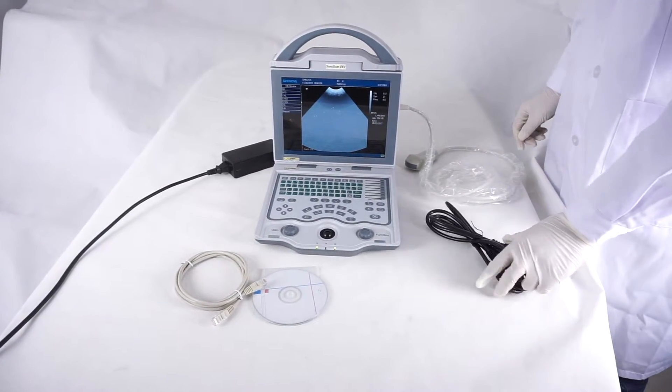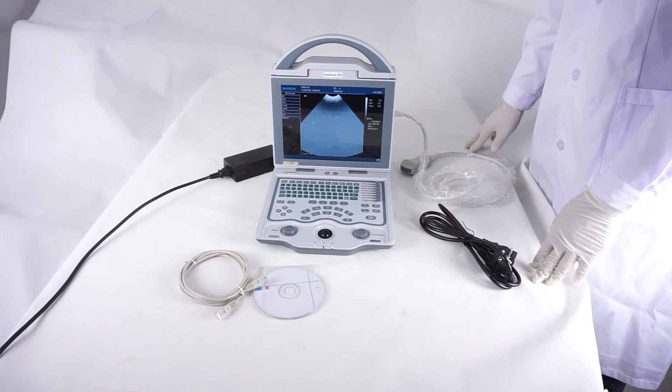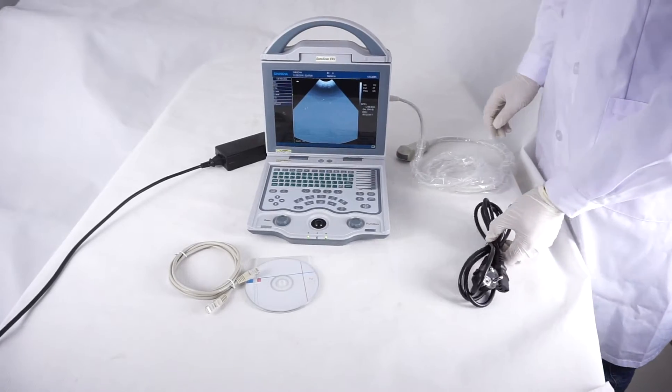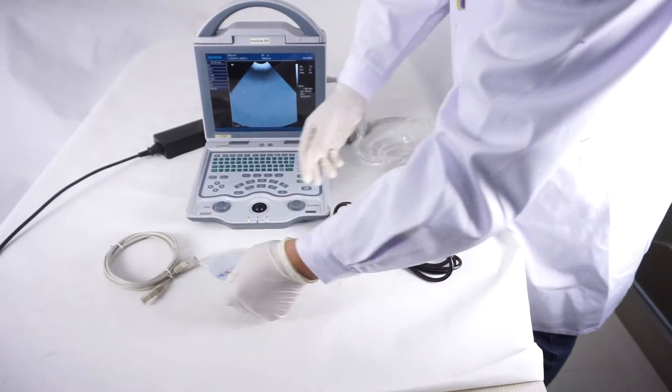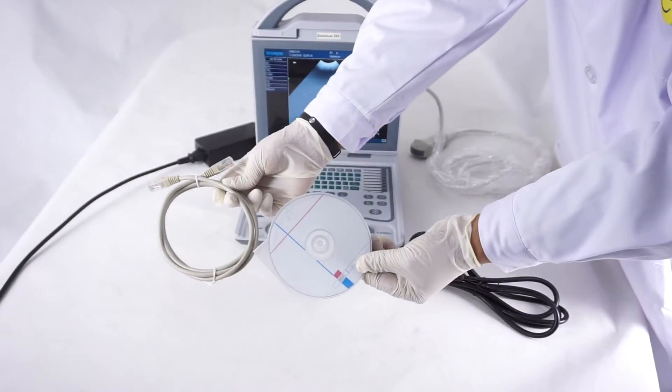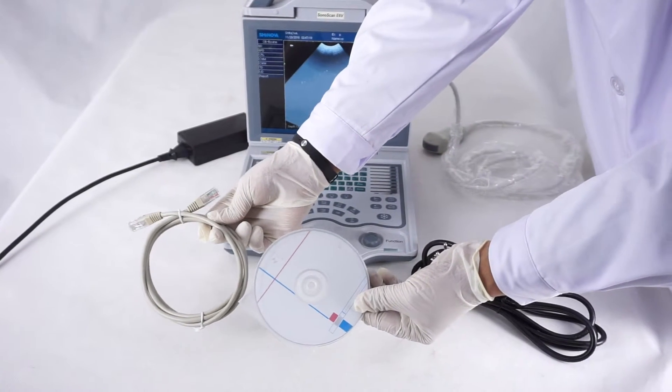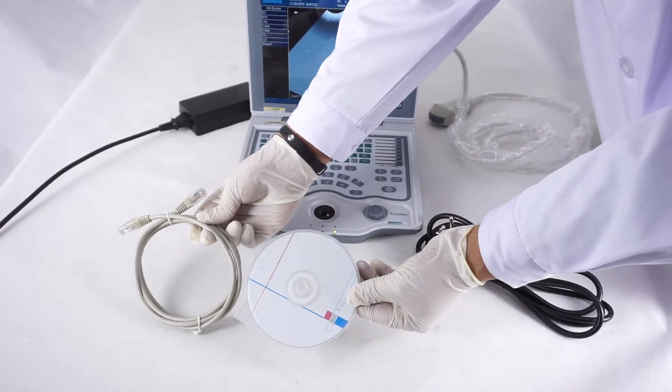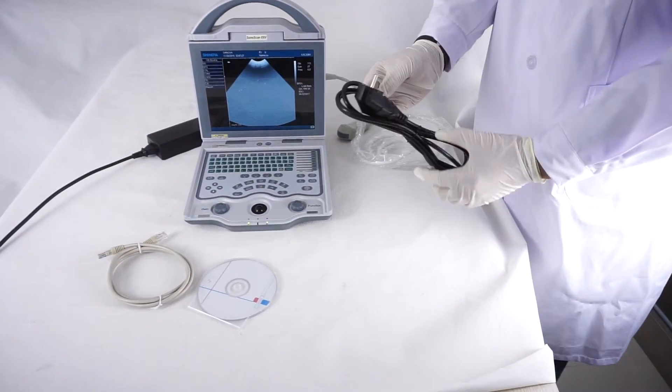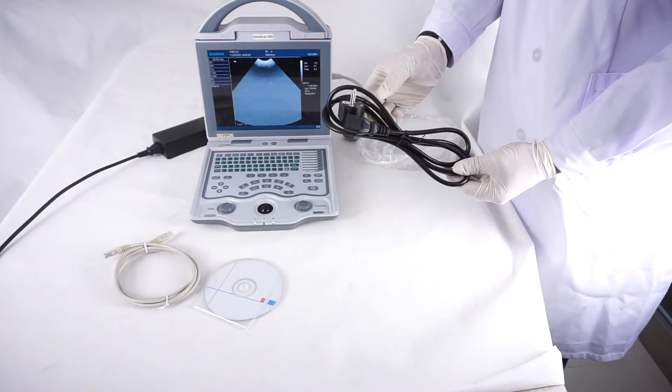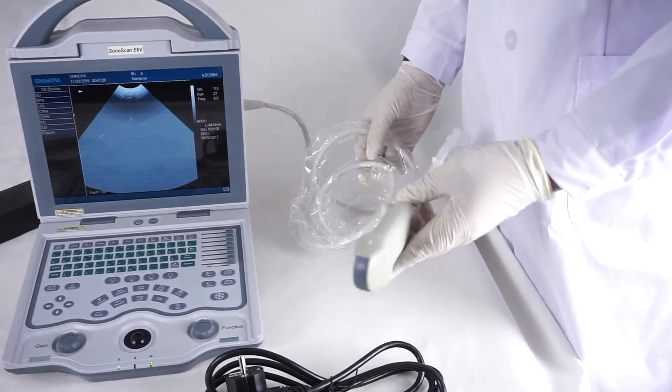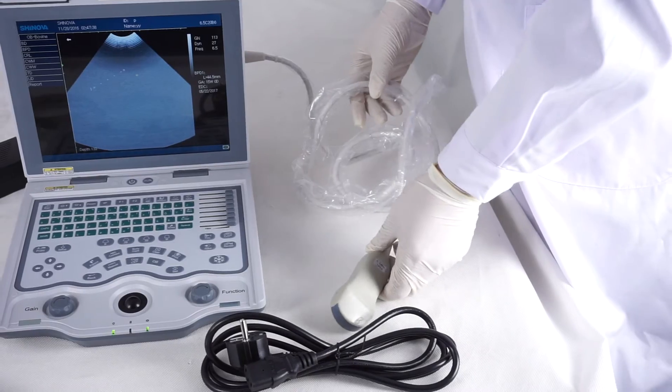The accessories are the European type plug, CD and network cable. With this, you can connect the computer and transfer the imaging to the computer. It's very easy and useful. Europe type plug, 6.5 micro convex probe.